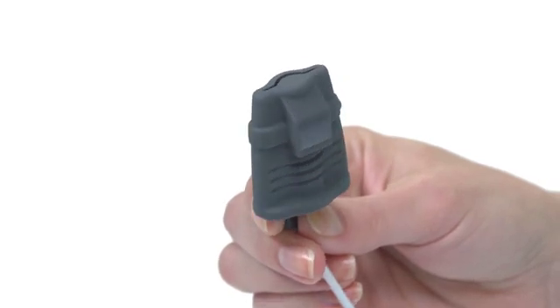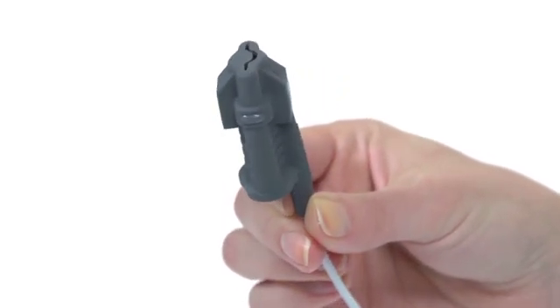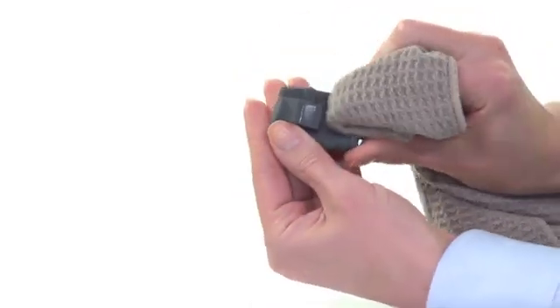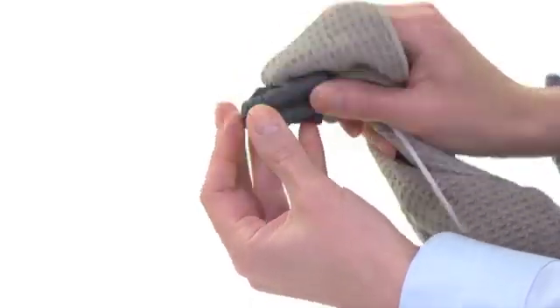8000SX soft series sensors are one piece designed for easy spot checking or continuous use. These sensors may be cleaned and reused on a new patient.